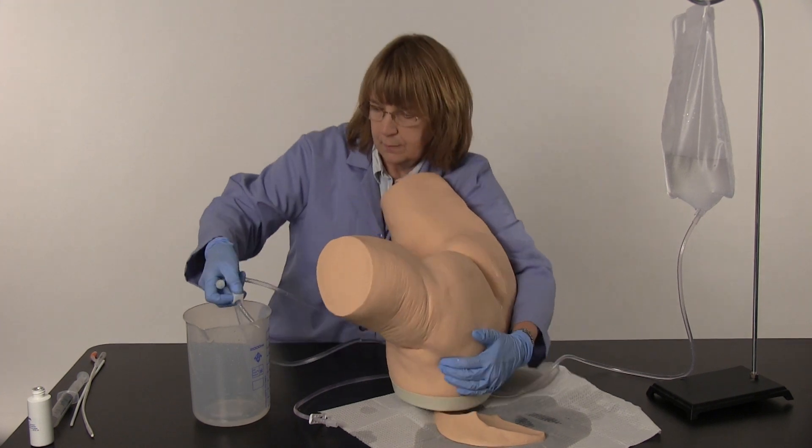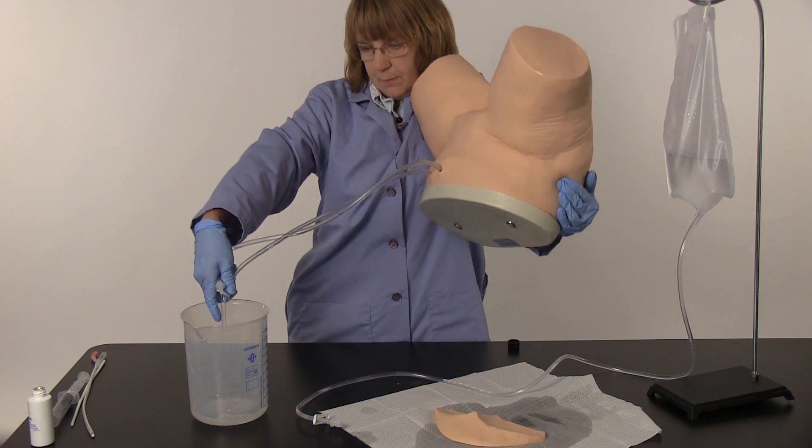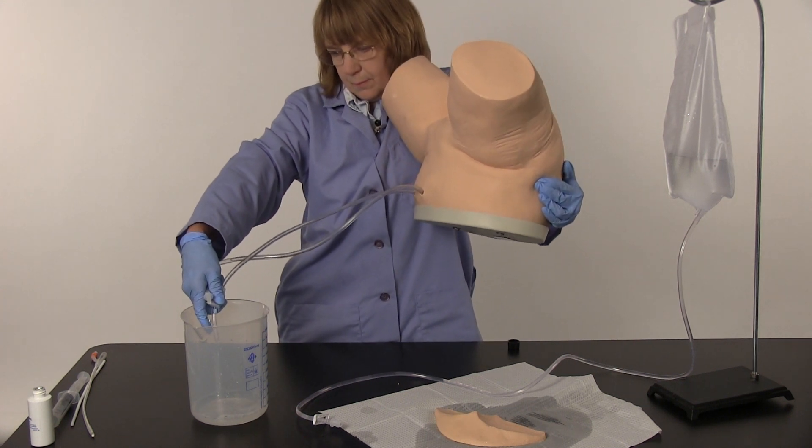Elevate the simulator and place the tubes in a water-safe basin or sink. Open the pinch clamp on the drain tube and allow the water to drain from the simulator's tubes.